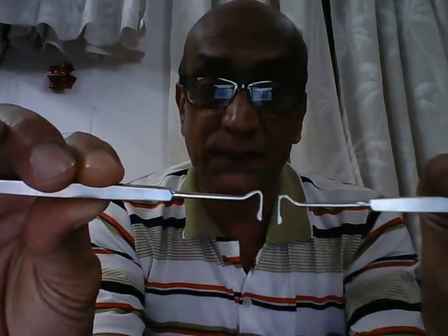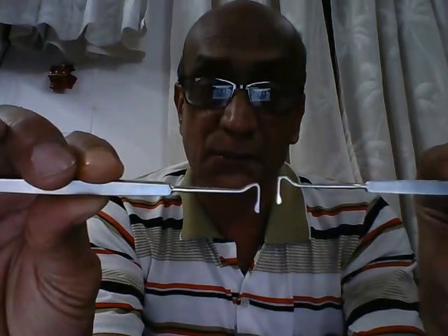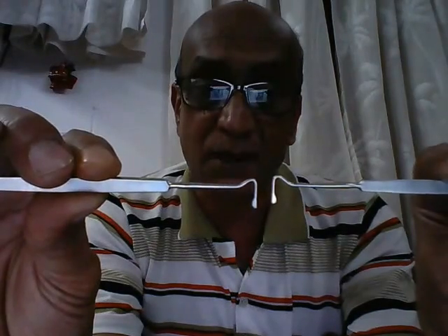This is the next instrument used in ophthalmic surgery. It is called the strabismus hook, or the muscle hook, or the squint hook. As the term implies, it is used to hook up one of the extraocular muscles during squint surgery.